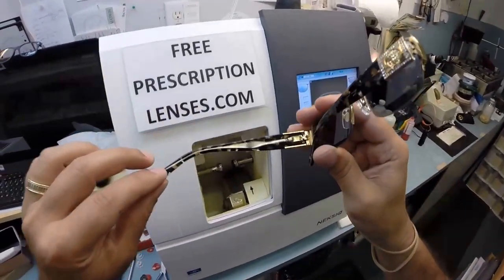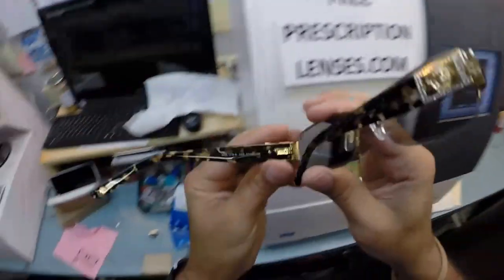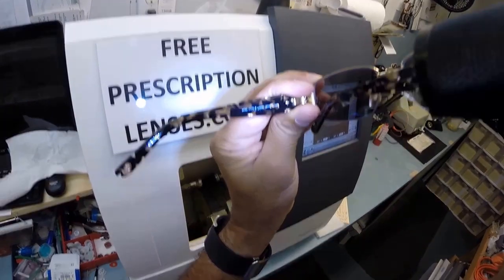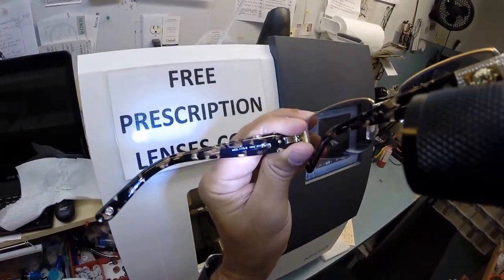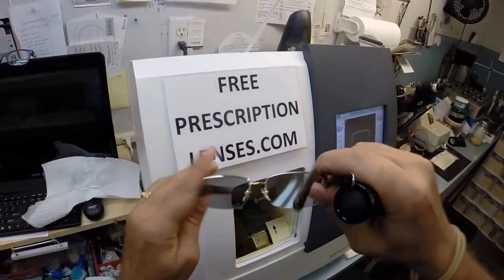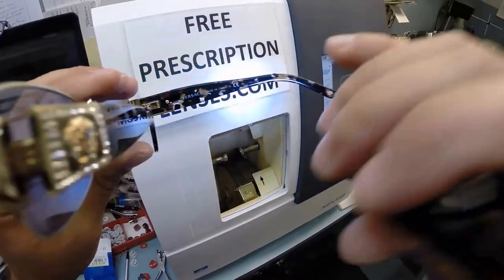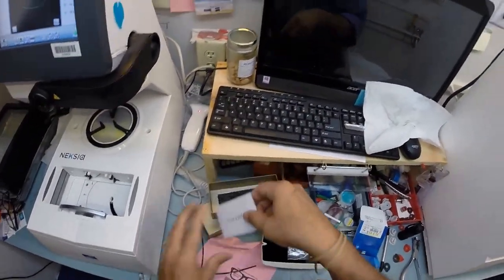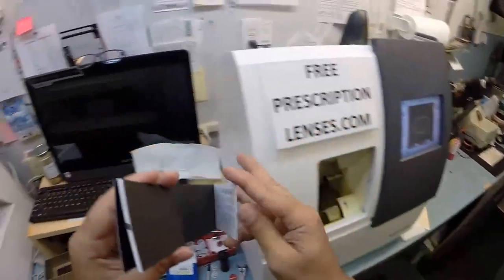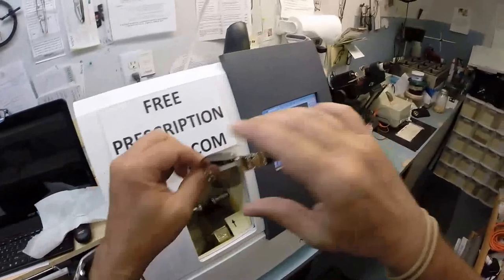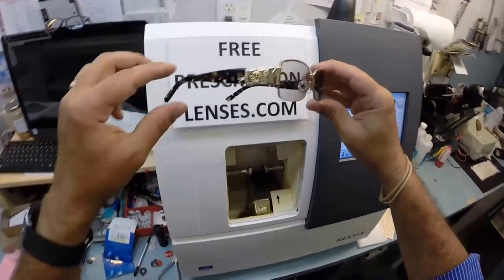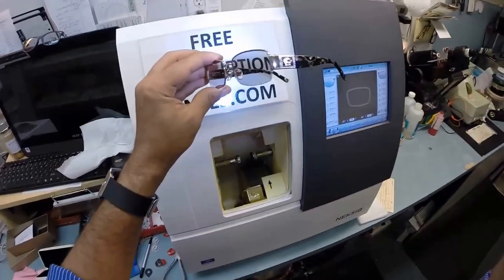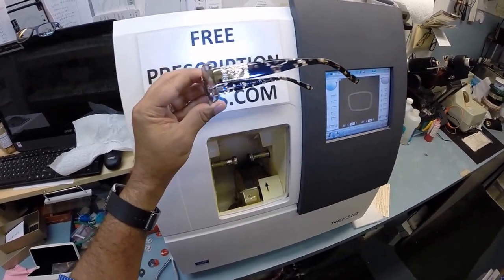So Angel in the city of Angels, Los Angeles, California, I hope you enjoyed watching as I cut prescription lenses for your Versace 1175B. The B stands for bling. Color 1002 in the 53 eye size. And of course these were made in Italy. This is the serial number on the temple that you will register with Versace. Just simply write it down on the inside of this card and you can register if you like. But I hope you enjoyed watching as I cut prescription lenses with Transitions Gray for your Versace 1175B. And hopefully everyone else has got the chance to see how I bring that love and feeling back to glasses. Thank you.